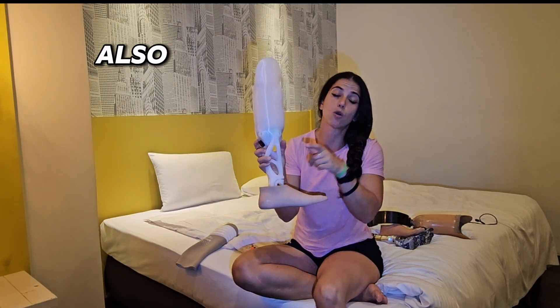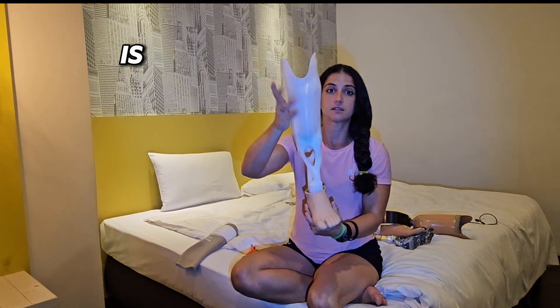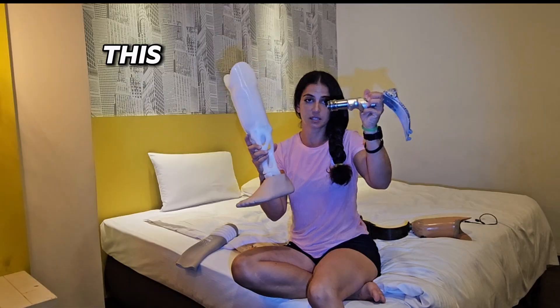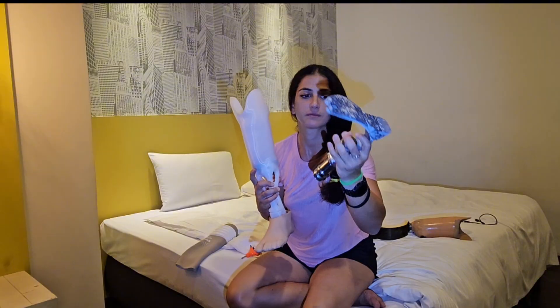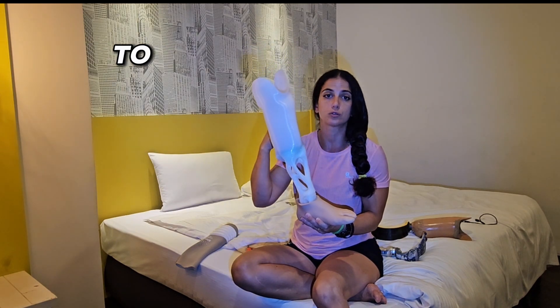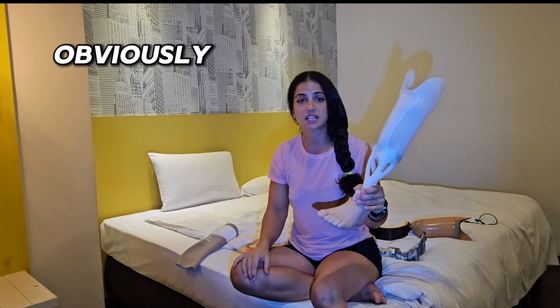You can also use a pin lock with the uni leg. It's not even a traditional socket — it's just the whole leg as one unit. I love it because it's much lighter. It doesn't rust, it doesn't have any of those problems. I can shower with it, go to the beach, get sand on it — nothing happens to this material.